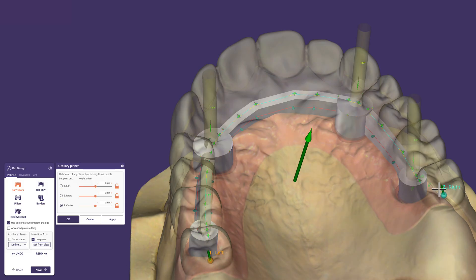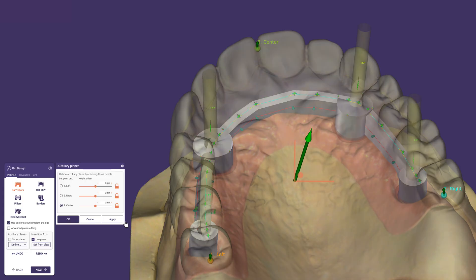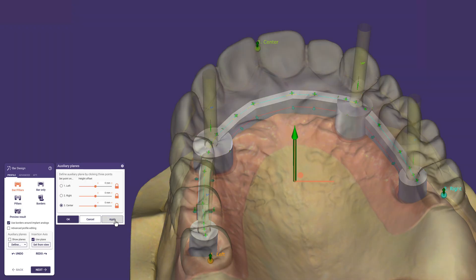These three points result in a patient-specific occlusal plane, which is also the foundation for the new insertion axis oriented orthogonally to the plane, because 'Use plane' is activated. Now you know three ways to define the insertion axis and you can change it at any time during the design. The bar segments will update accordingly.